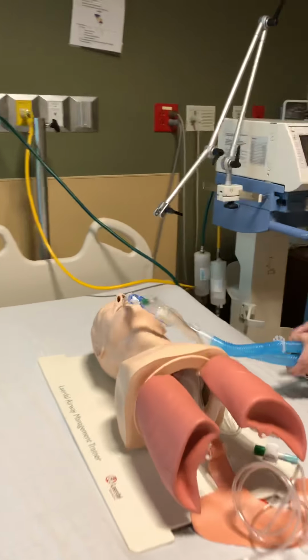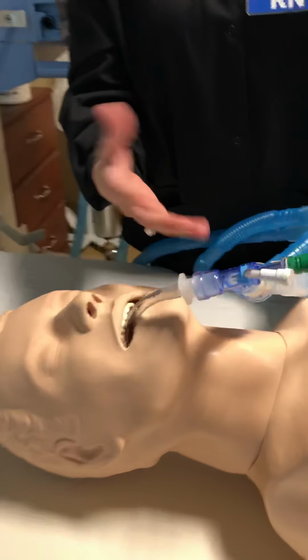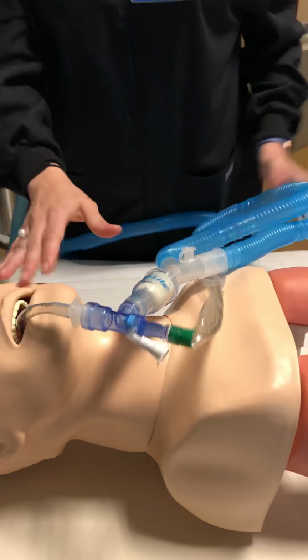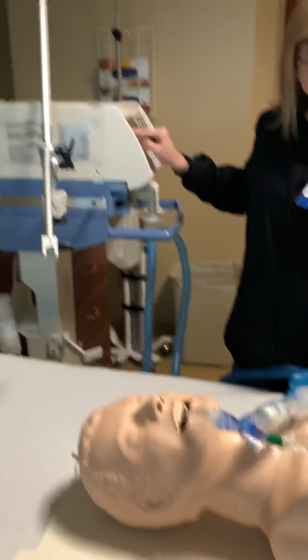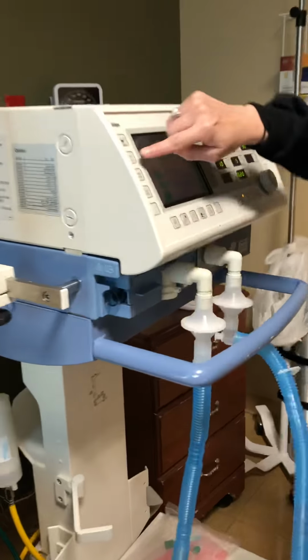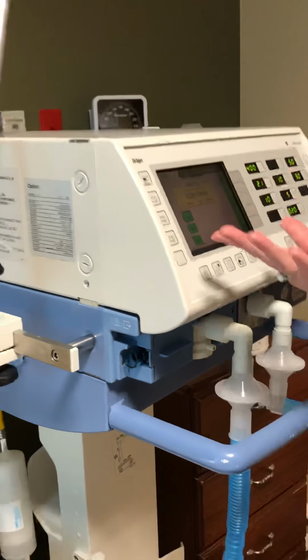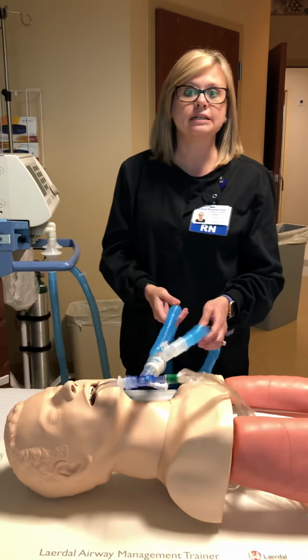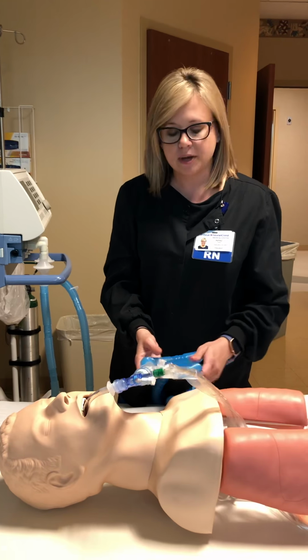So remember I said the patient could possibly have secretions in their ET tube and they need to be suctioned. When you come into the room and you see the secretions, you're going to go ahead and give them 100% oxygen. It's called pre-oxygenation. You're going to pre-oxygenate by hitting the O2 button to give 100% FiO2. Remember, these patients are typically really sick and they're dependent on their oxygen. They don't have a lot of reserve, okay?